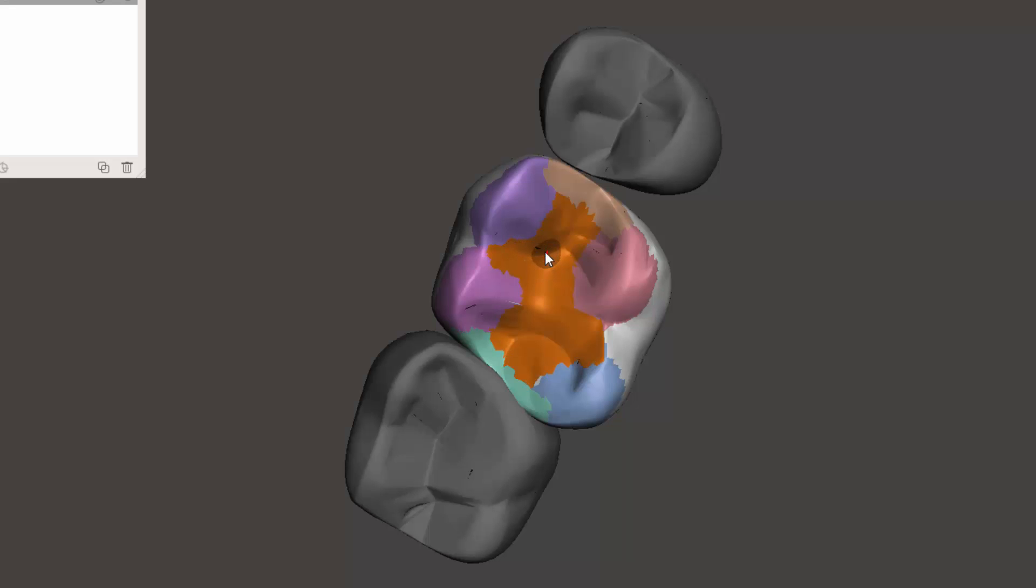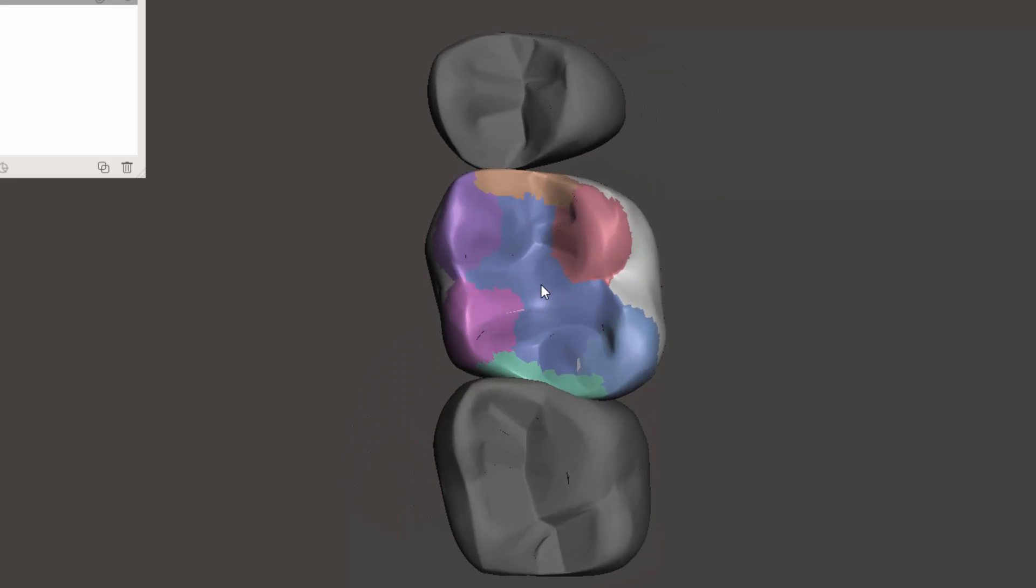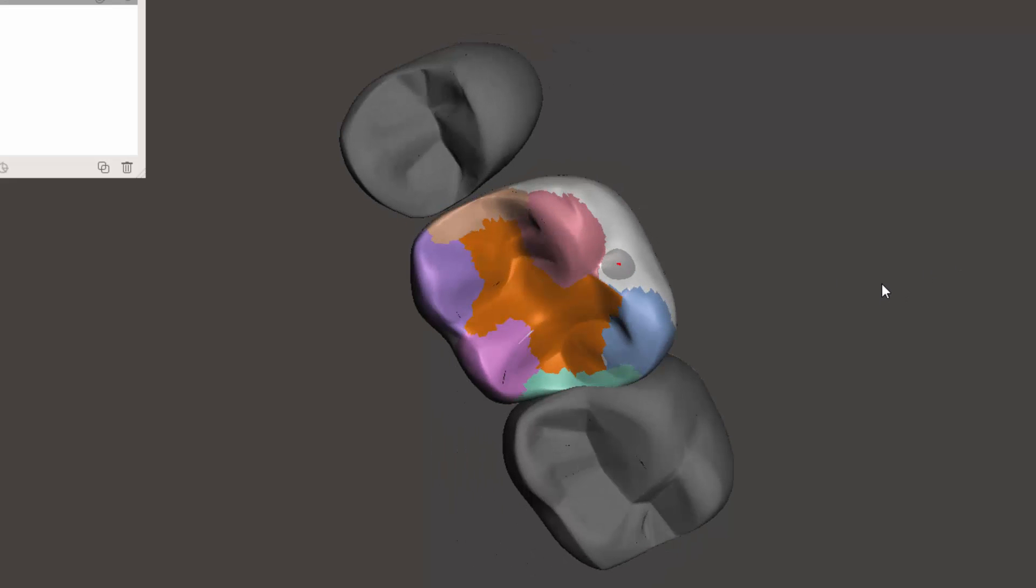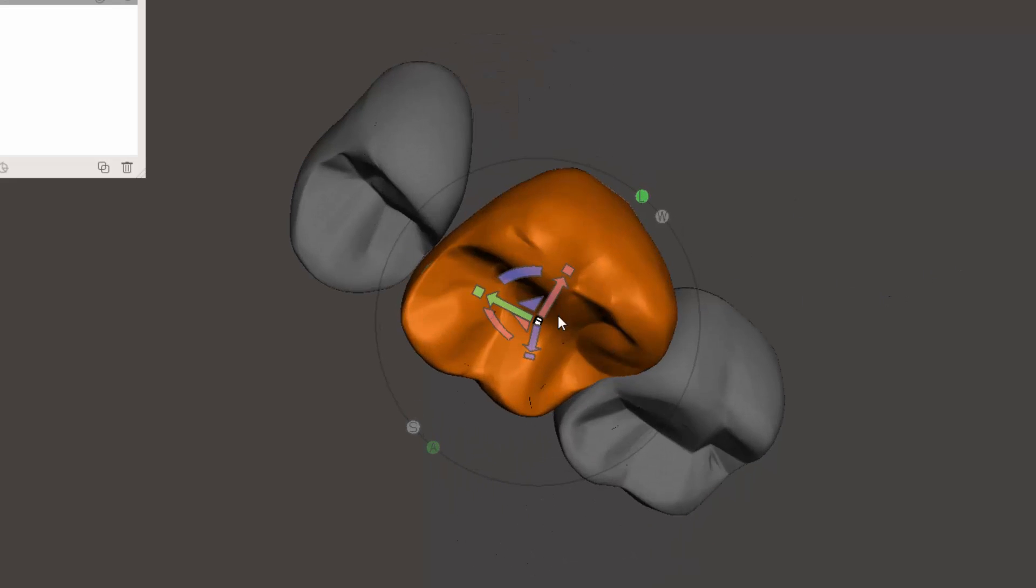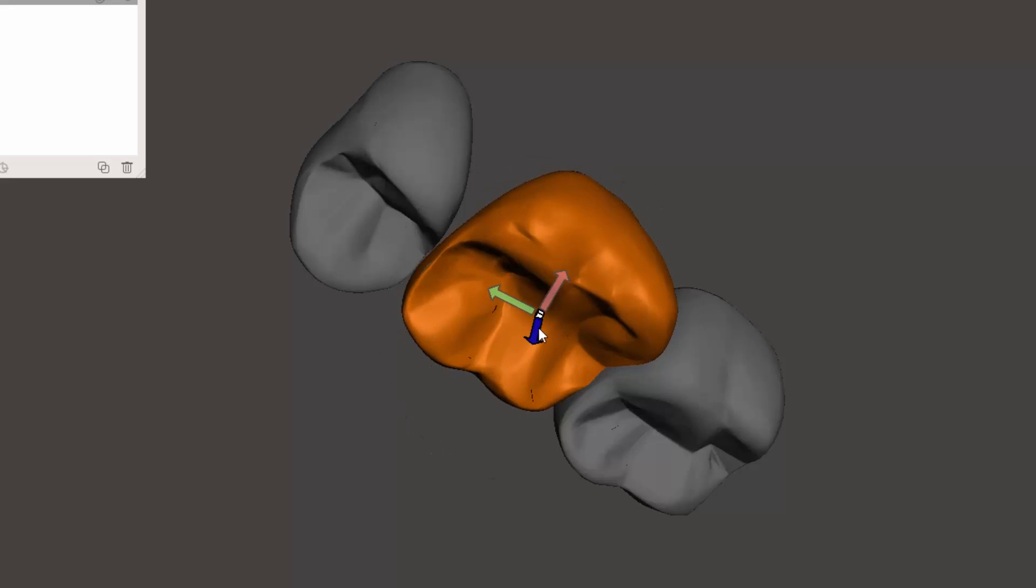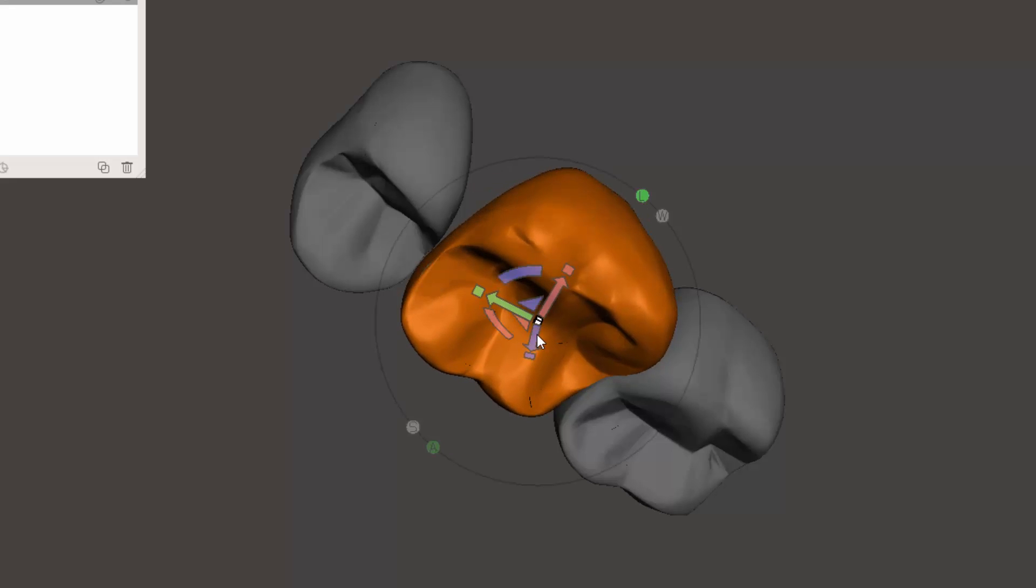It won't always. That is a problem that I've encountered with MeshMixer. So we'll see if we can get it to soft transform now. Let's see if it and now it's selecting the entire thing.